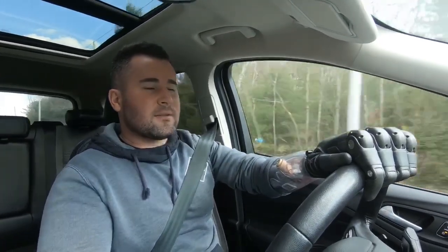I'm not even going to get into the other grip patterns this hand has right now because it's just going to be a lot — and I'm driving home, so it takes a lot of thought and concentration.